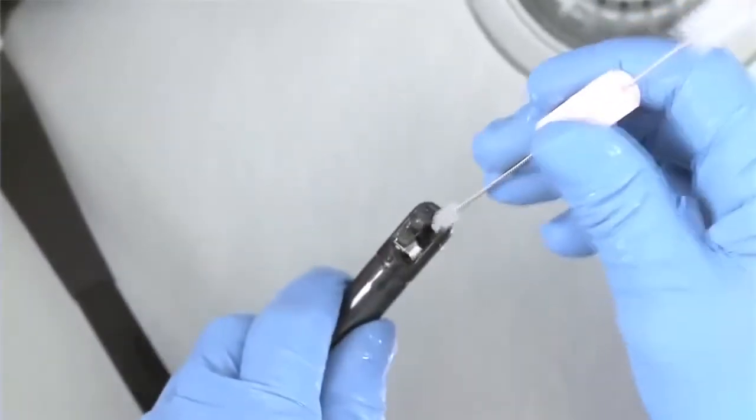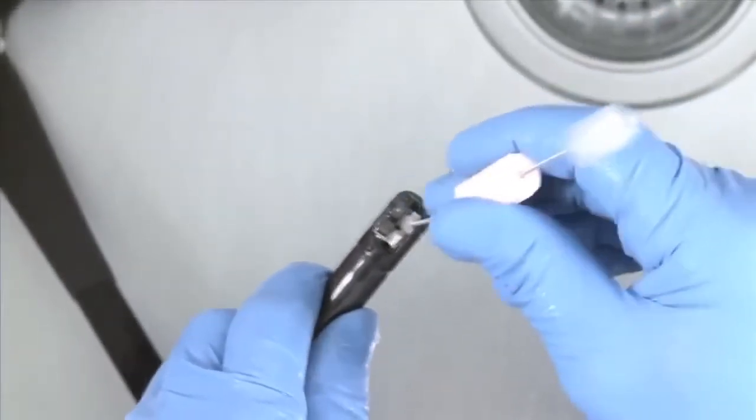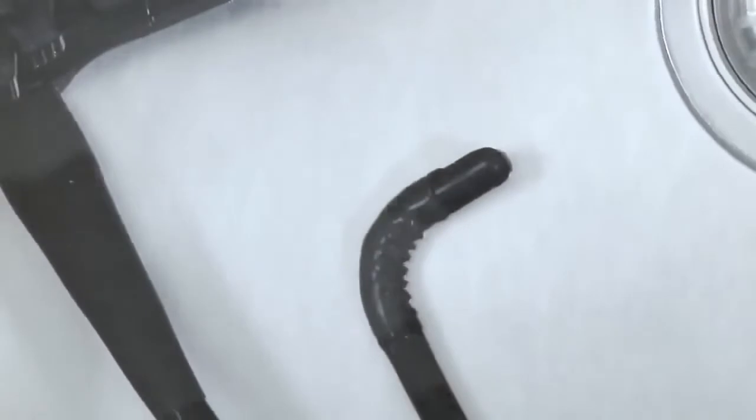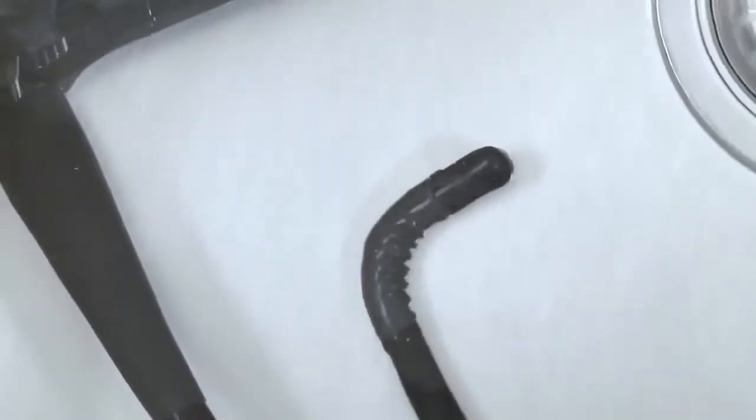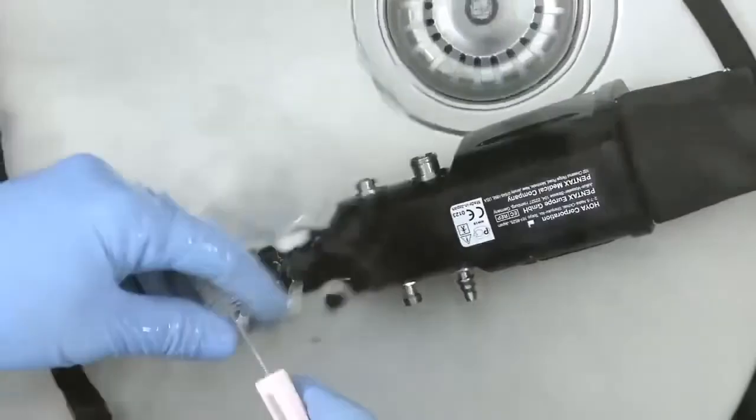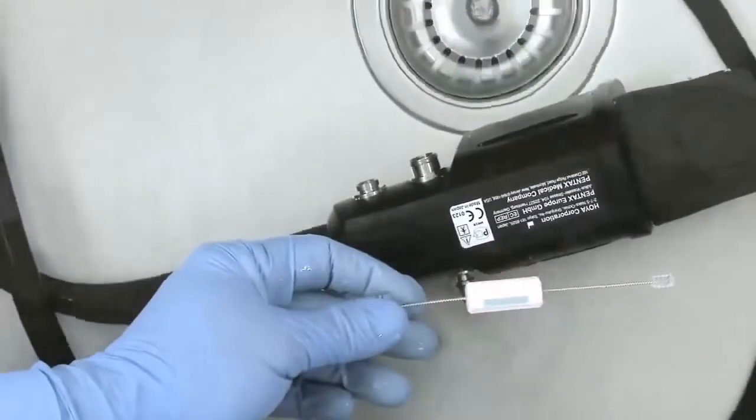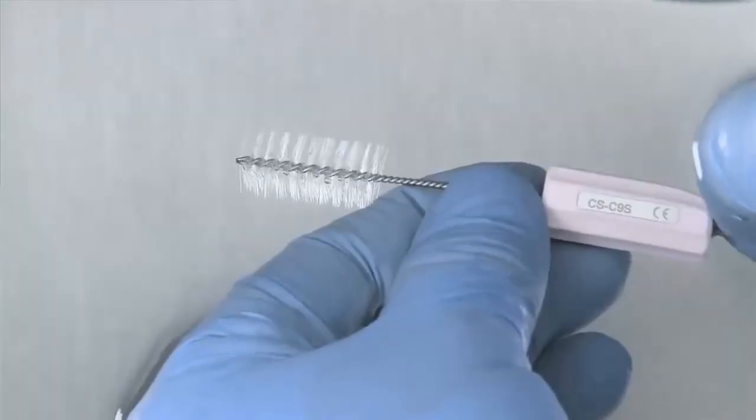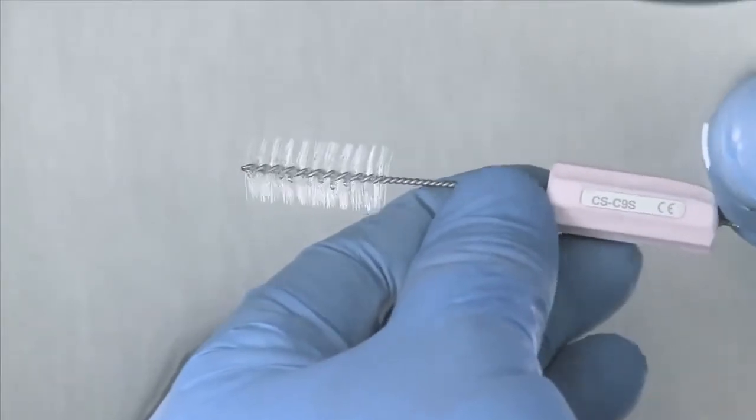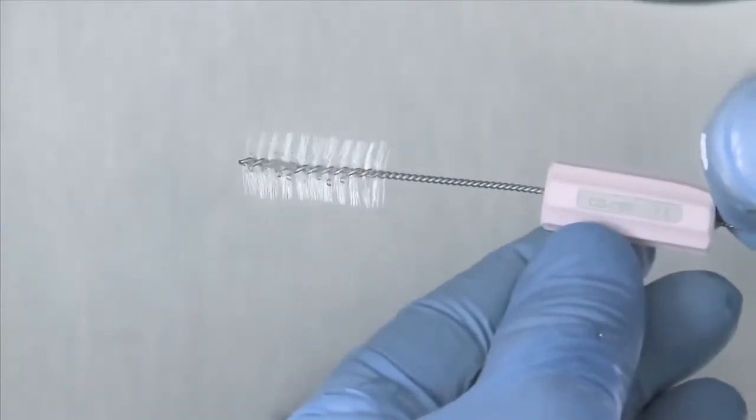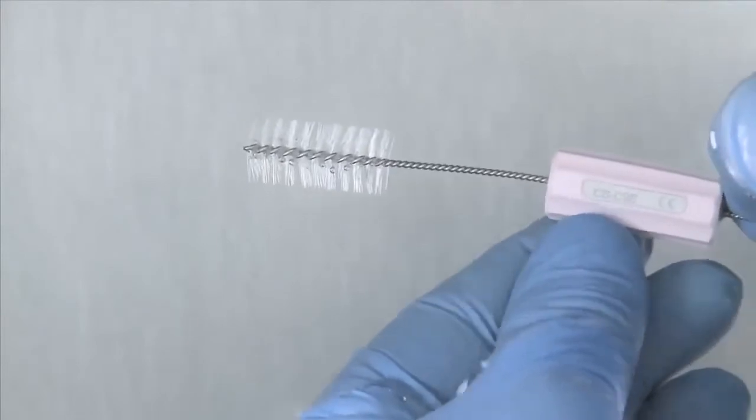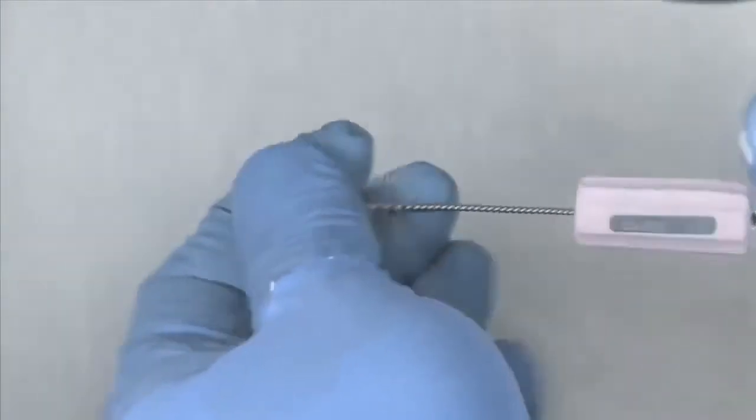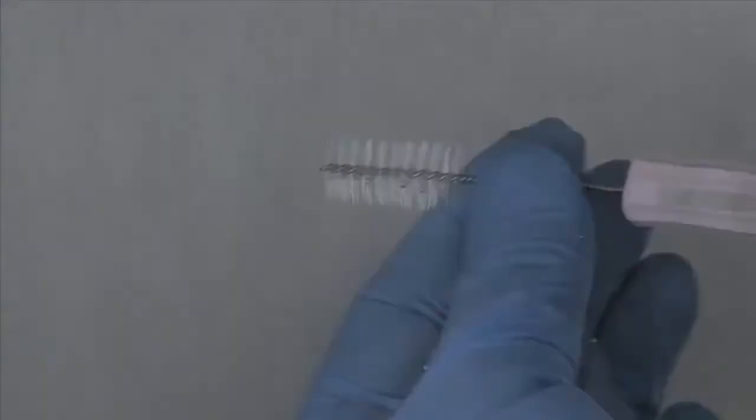When possible, make sure that the endoscope is kept completely below the fluid surface. Remember that this cleaning process is valid only if Pentax cleaning brushes are utilized. Before attempting to use non-Pentax cleaning brushes, please consult with your risk management department to ensure that the brush supplier has validated its endoscope cleaning procedure in accordance with relevant regulatory guidelines.